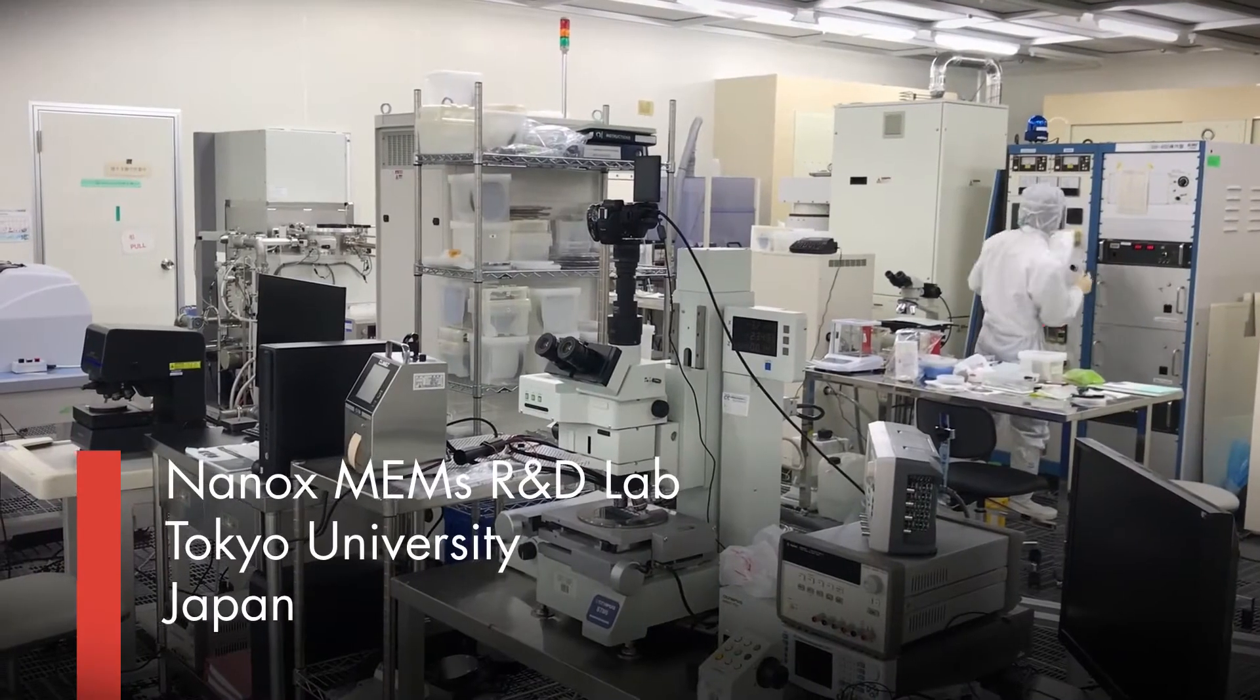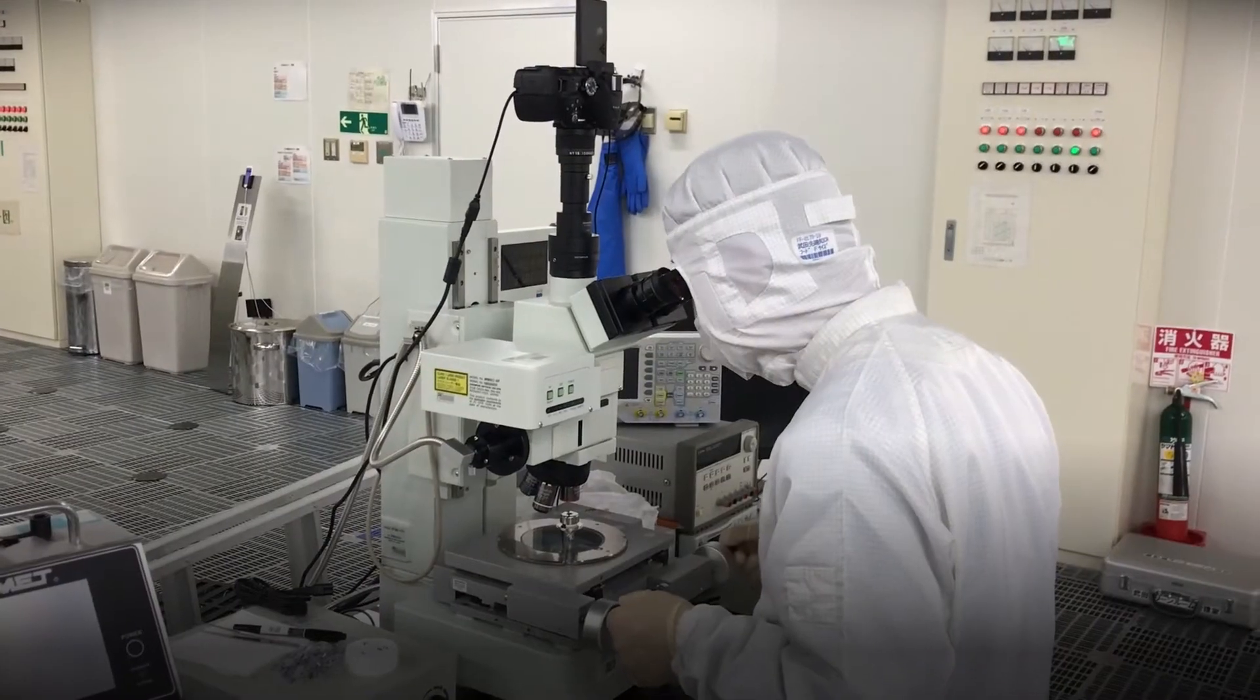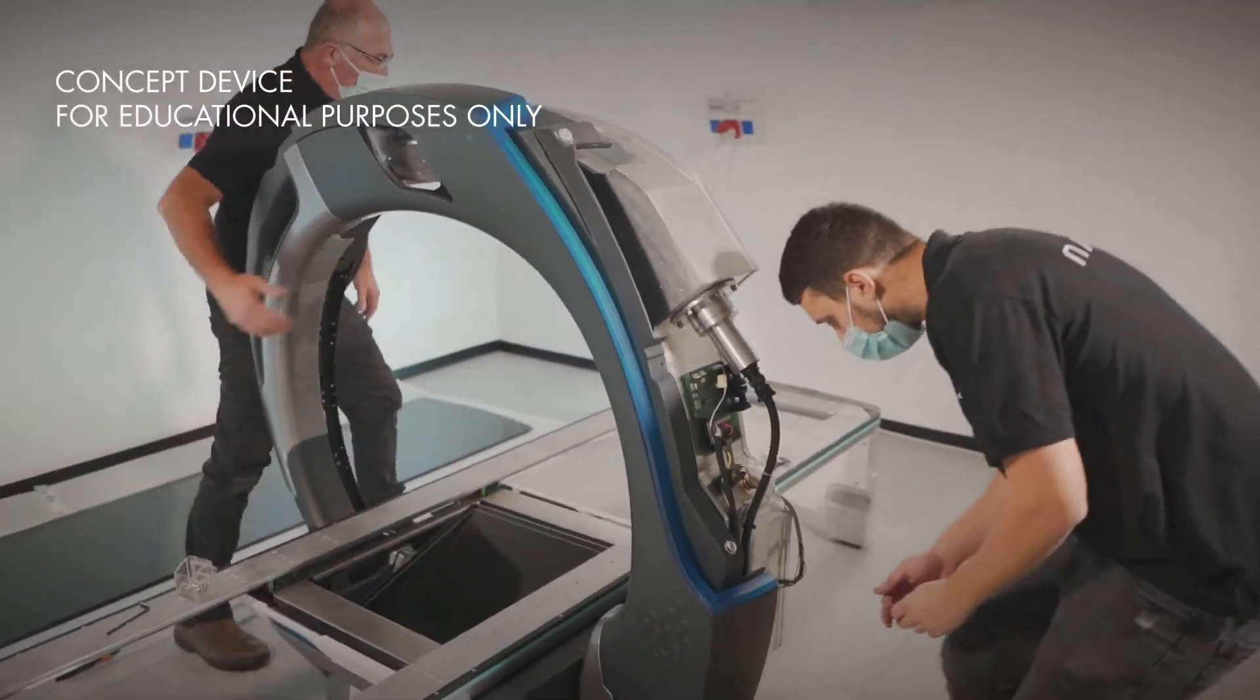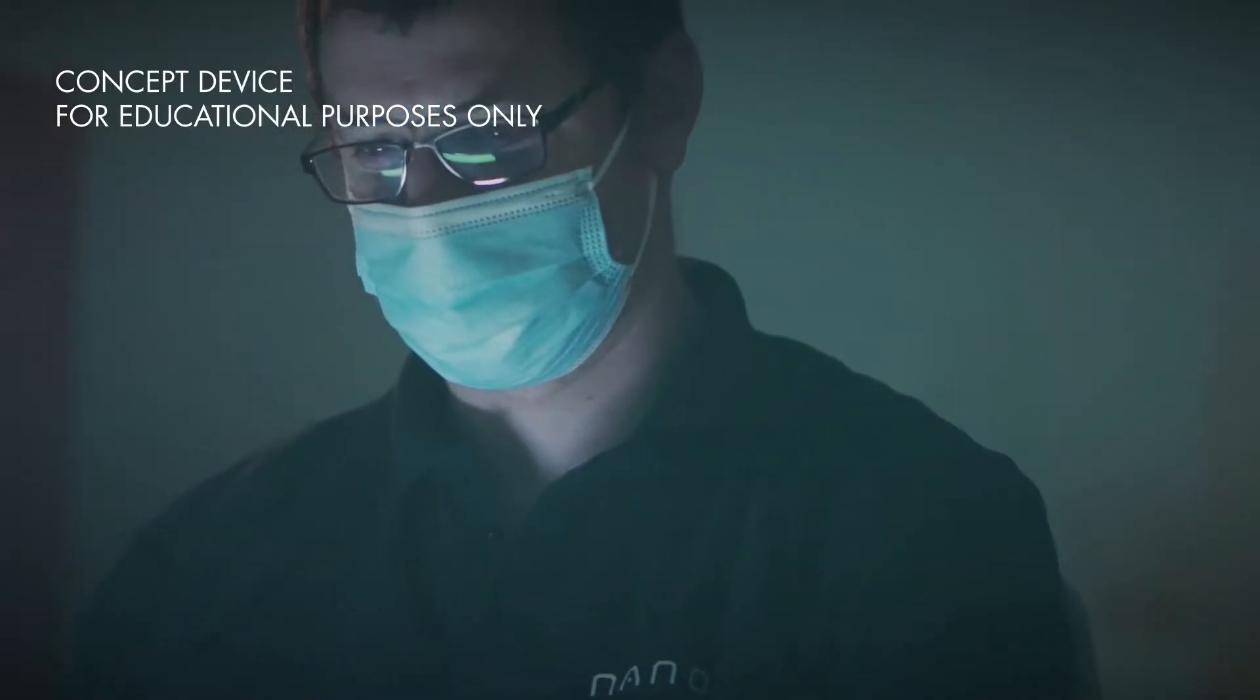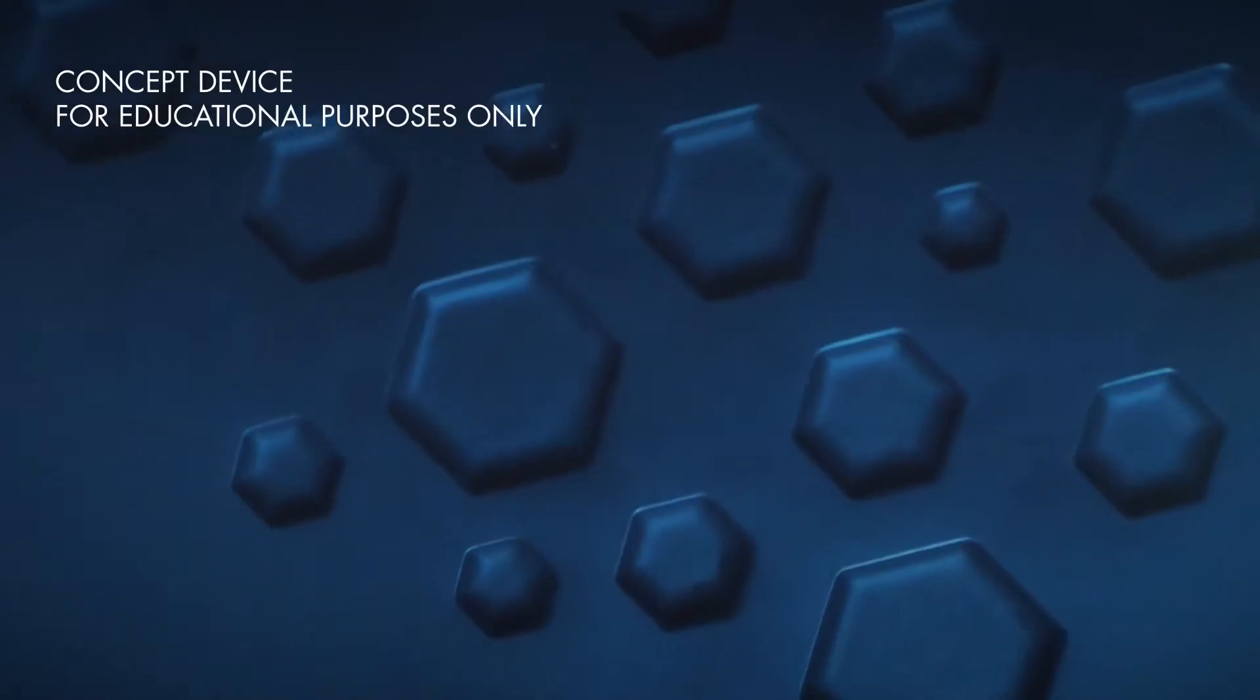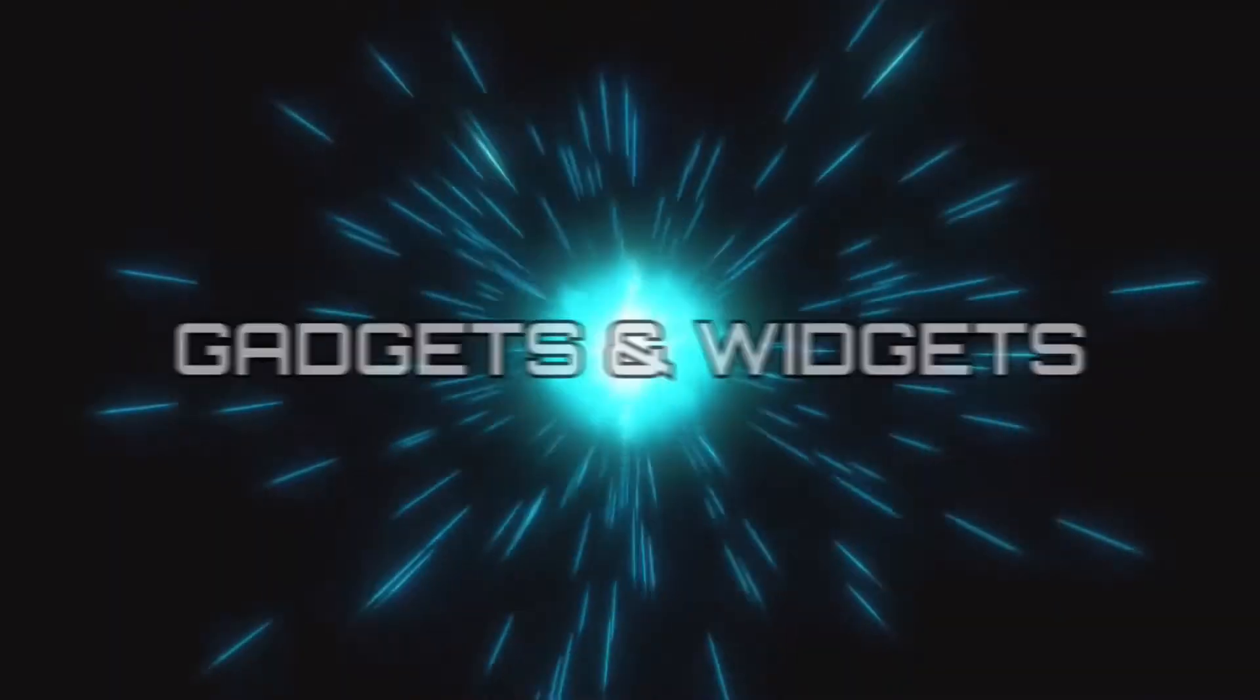Early detection through biomedical imaging may potentially save millions of lives annually. According to the World Health Organization, two-thirds of the world's population have no access to medical imaging systems. Over eight years of development, Nanox produced a novel digital x-ray source that enabled a significant reduction in medical imaging systems cost and footprint.